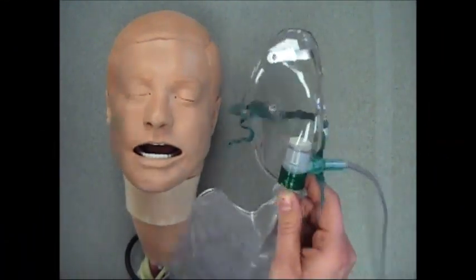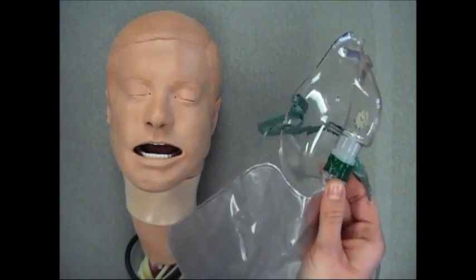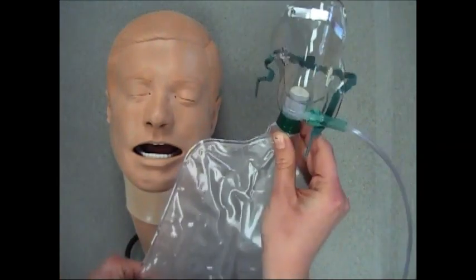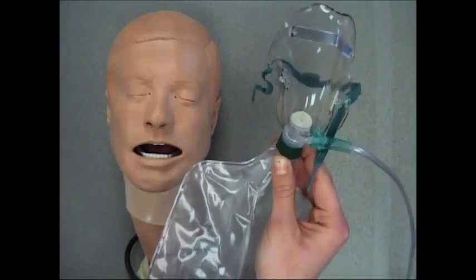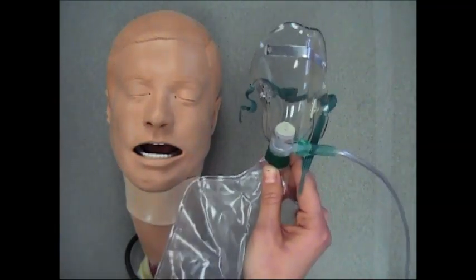Hey guys, we're going to talk about the non-rebreather oxygen delivery device. What you see in front of me is a non-rebreather mask. This mask delivers high-flow oxygen to a patient and helps correct or prevent hypoxemia. It also decreases the work of breathing for our patients.